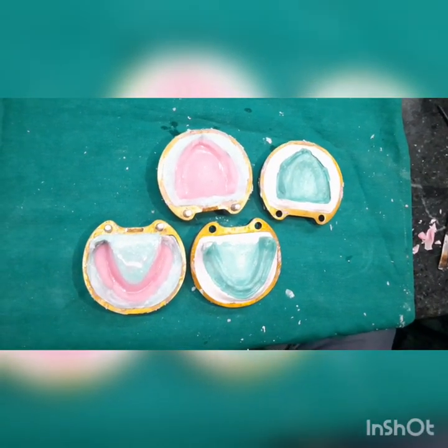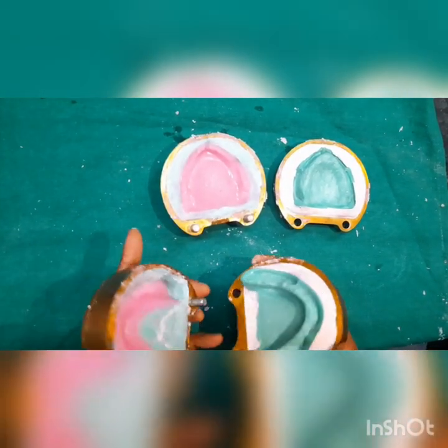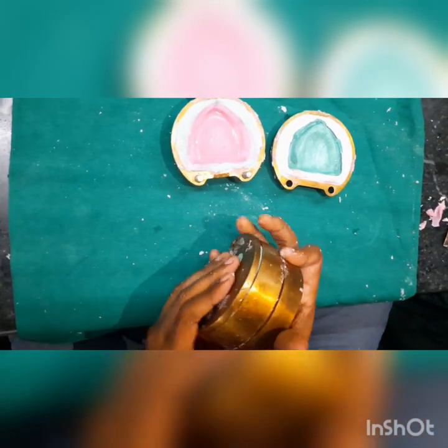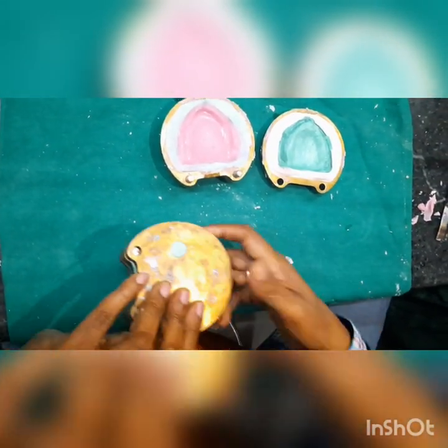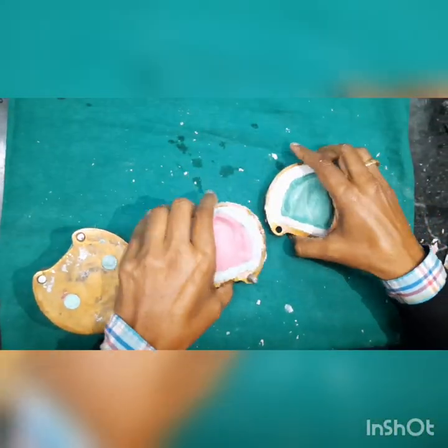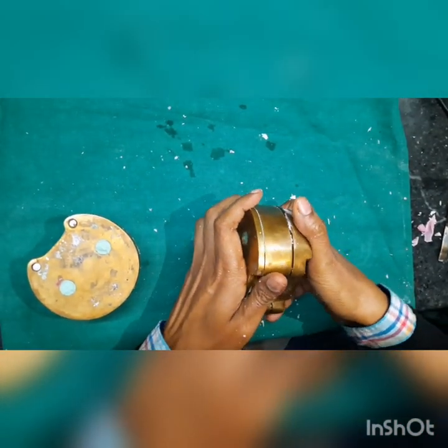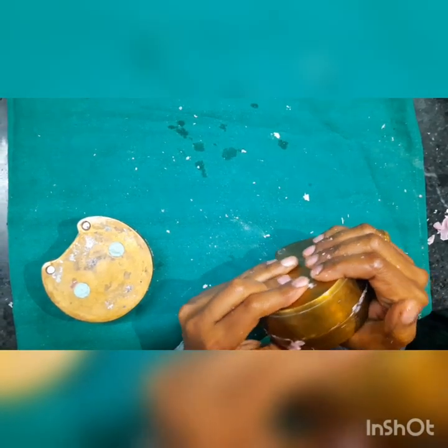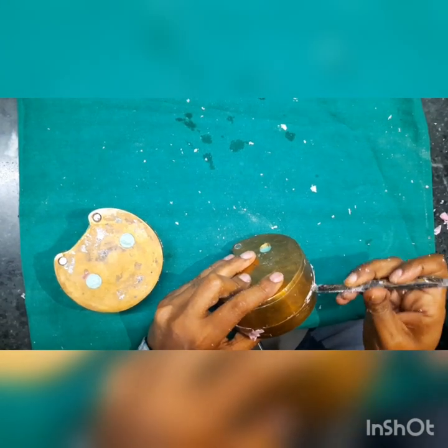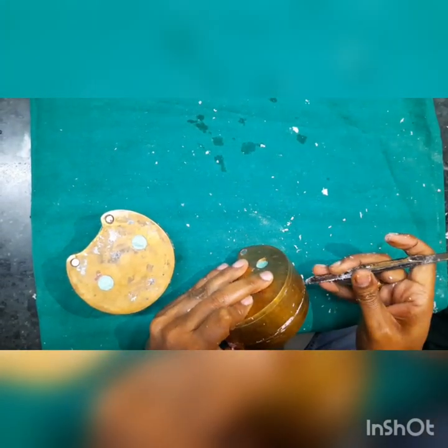Once the trial closure is satisfactory, we remove the plastic sheets and directly assemble the two parts together, approximating them nicely so that there is good metal-to-metal contact. We place it on the hydraulic press and approximate again. Whatever excess material you see around, just remove it, because once curing is done it will interfere.